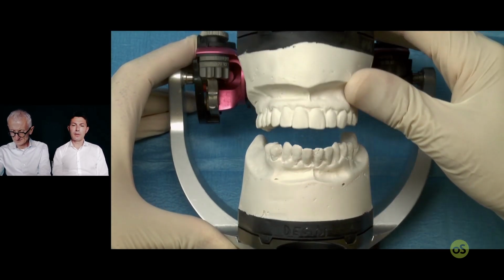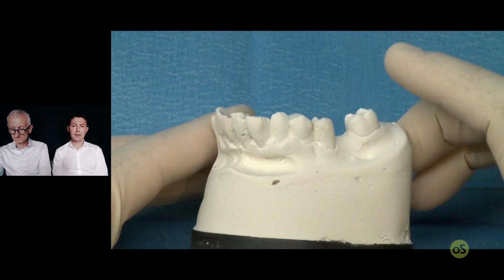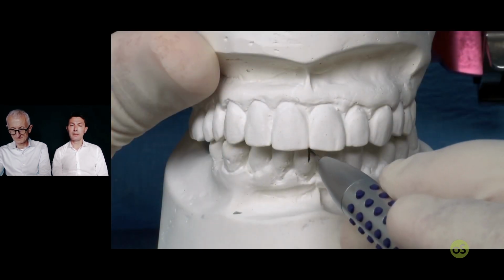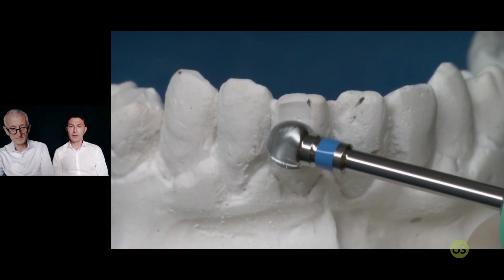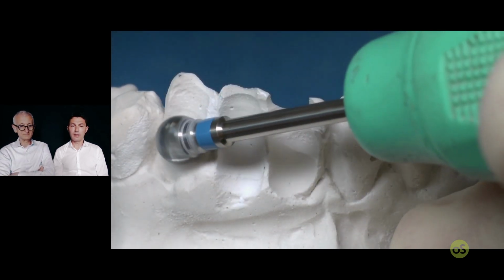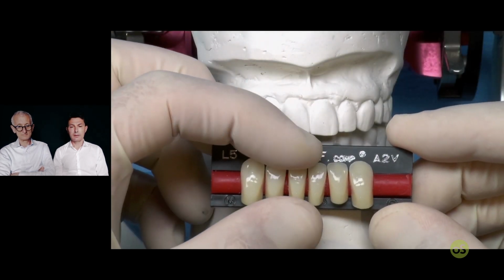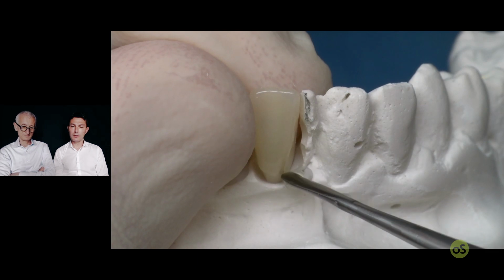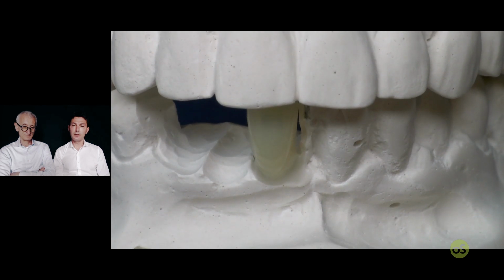Now the same approach and the same veneer, but in the lower. And in this particular case, we need to change the midline with respect to the upper, and I think it is a good choice now. And only now I start to extract the incisor and the cuspid, and select the commercial veneer and place in position with this approach, with a little drop of sticky wax, and the new midline for the patient.